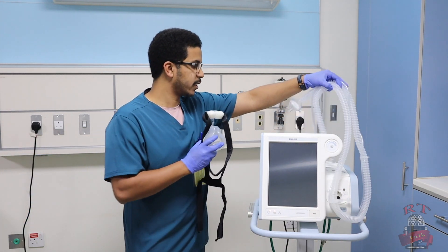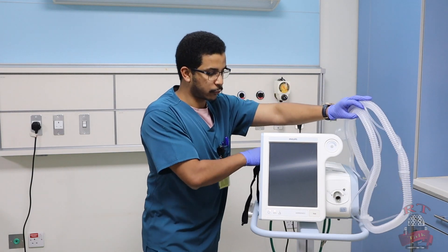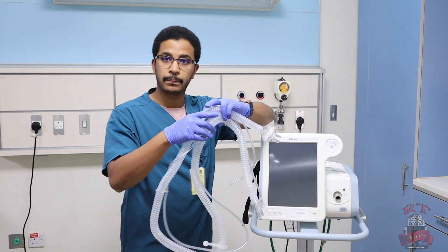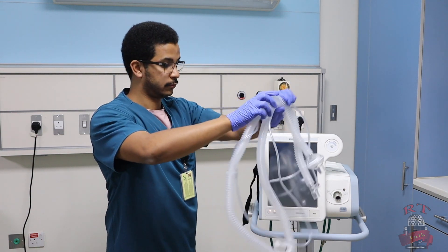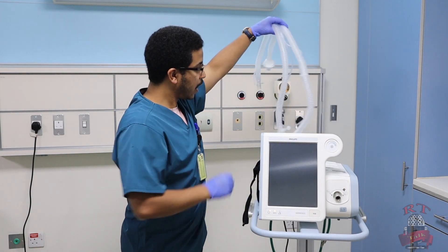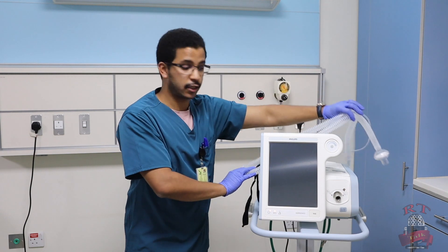The third thing we have to provide is our BiPAP circuit, as we see right now. So now everything is ready for connecting.